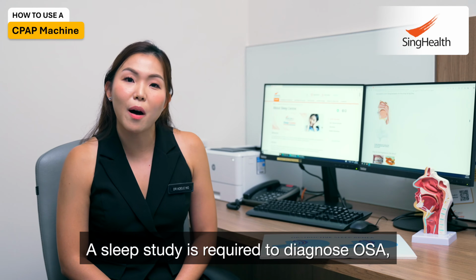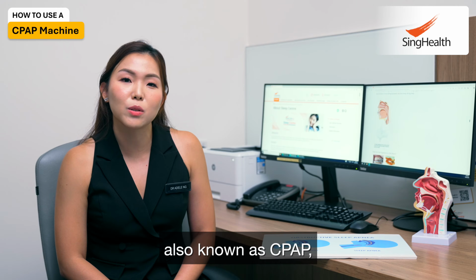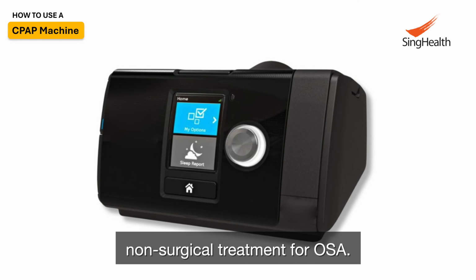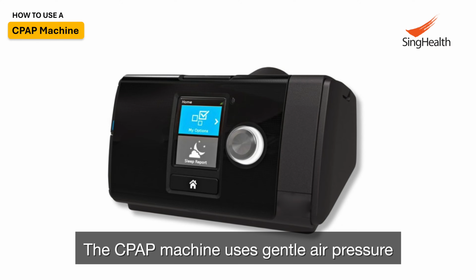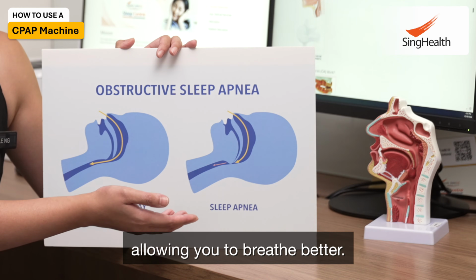A sleep study is required to diagnose OSA, and continuous positive airway pressure therapy, also known as CPAP, is the gold standard and most effective non-surgical treatment for OSA. The CPAP machine uses gentle air pressure to keep your airways continuously open during sleep, allowing you to breathe better.